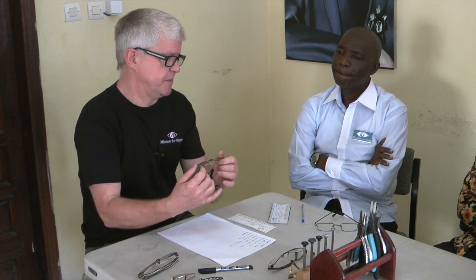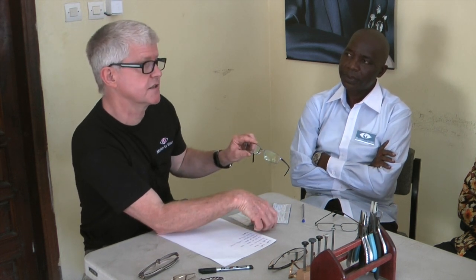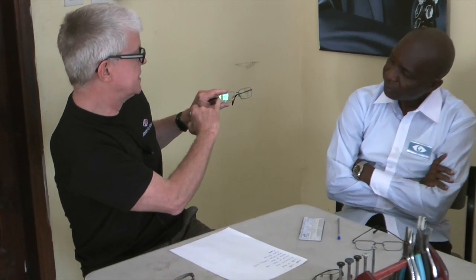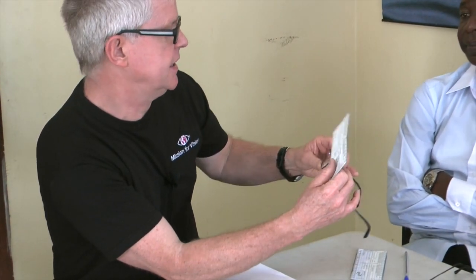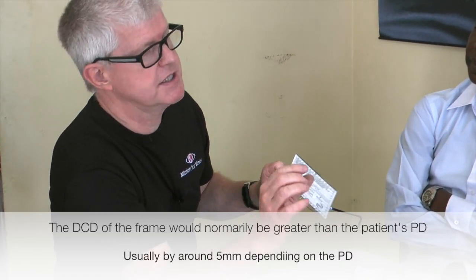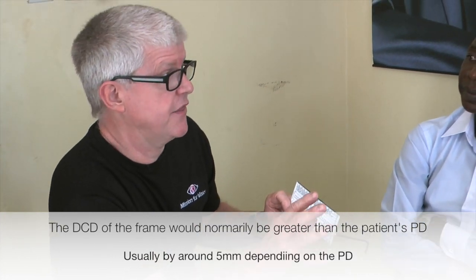Remember what we were saying — the DCD, which is the datum center distance of the frame, is the distance from the outside of this lens to the inside of this lens at the central point. That's called the DCD. When you're choosing a frame for someone, you usually choose a frame where the DCD is either the same or slightly bigger than their PD.